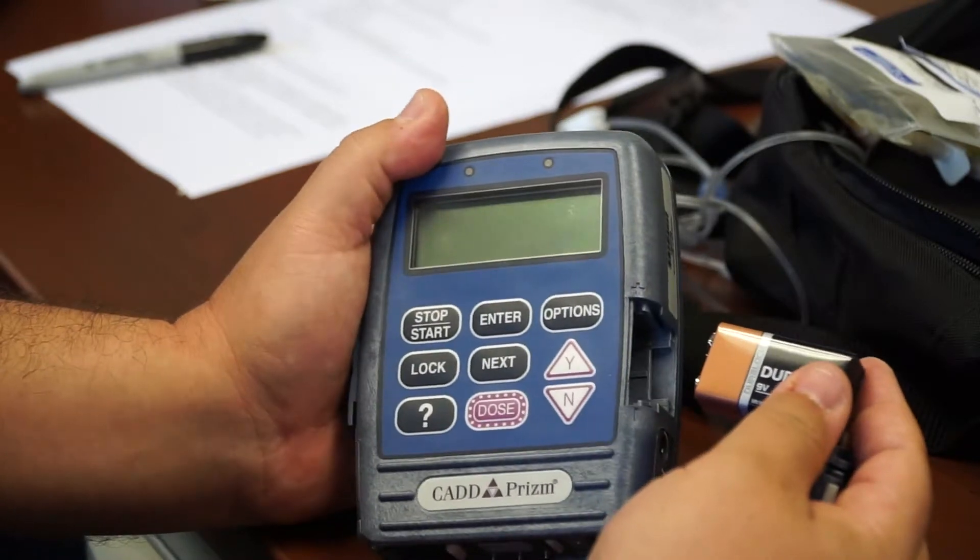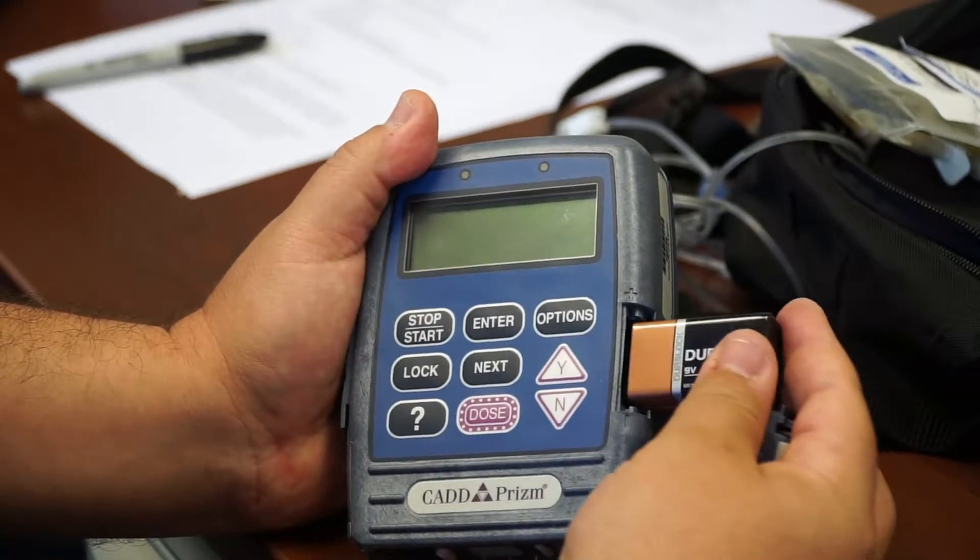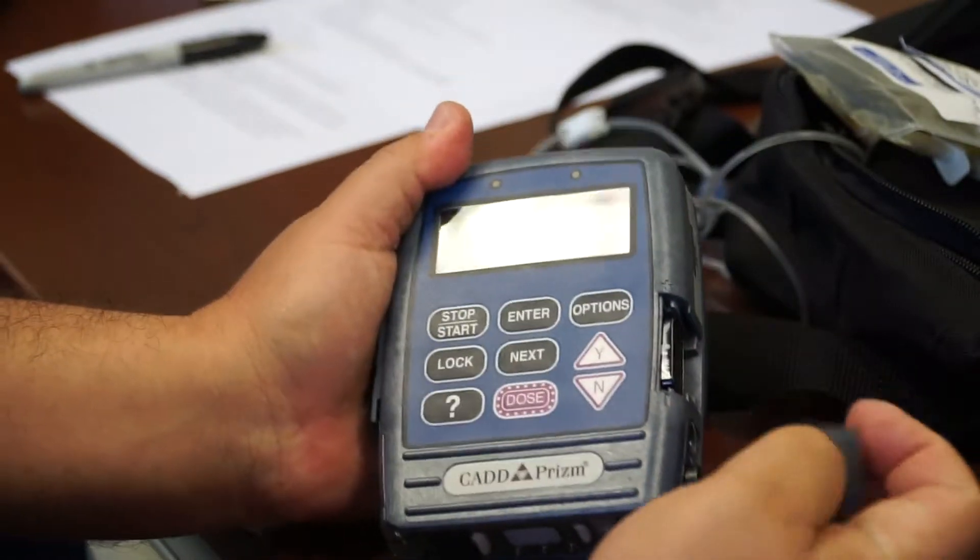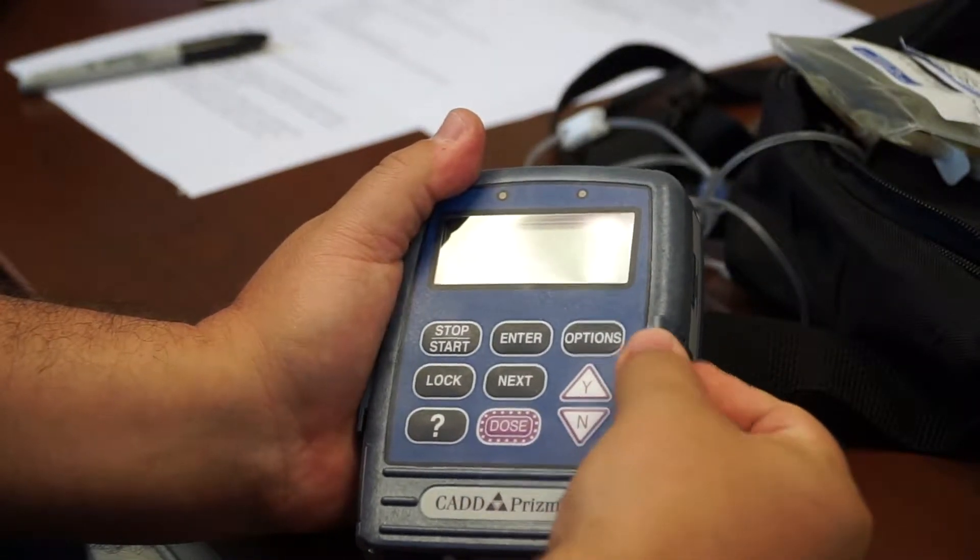You know the battery is connected the right way when you hear it beep. So that's the wrong way. That's the right way. Slide the door back in place.